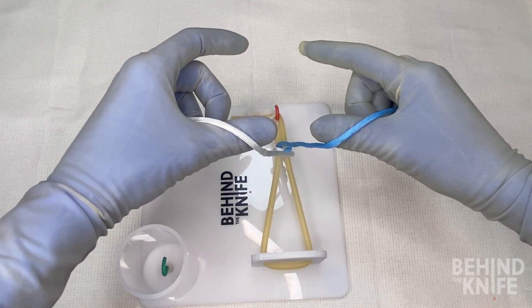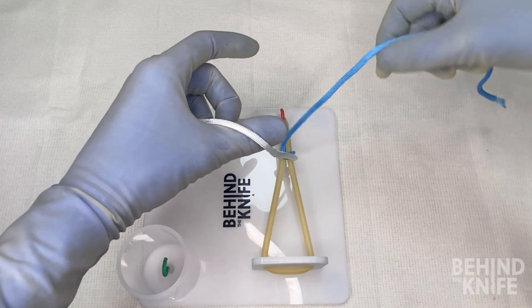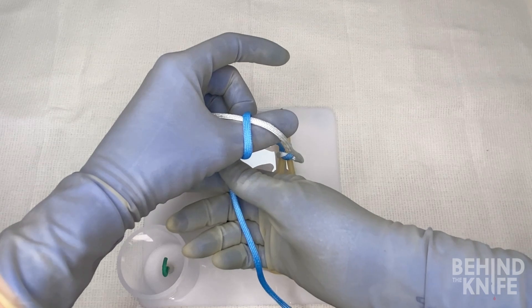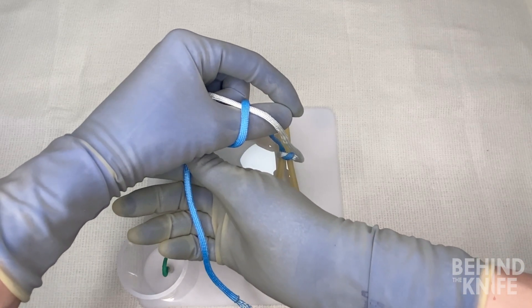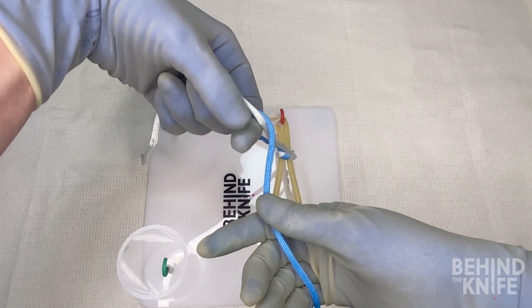Similar to what we did before, we're going to take our right hand and cross it over the string that's on our left thumb to make an X. We'll pinch our thumb and our index finger, and we'll rotate them through, so now our thumb is on top and our index finger is on the bottom.